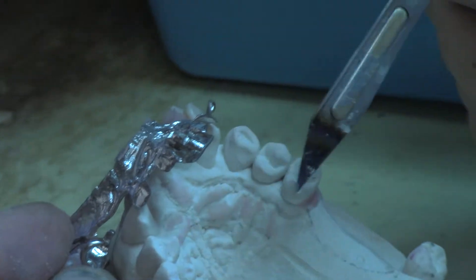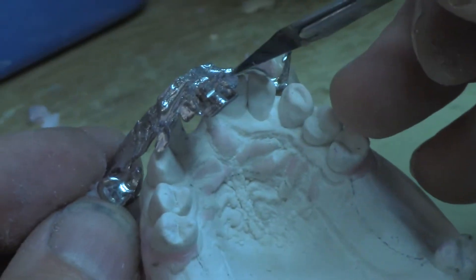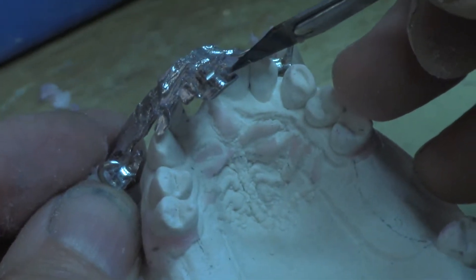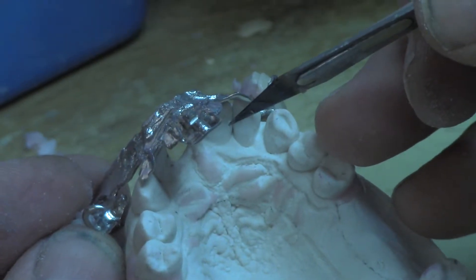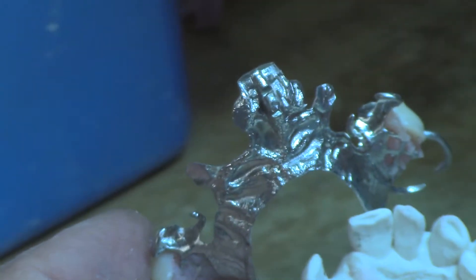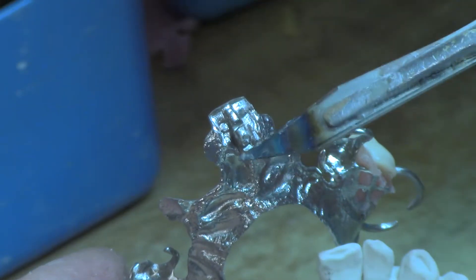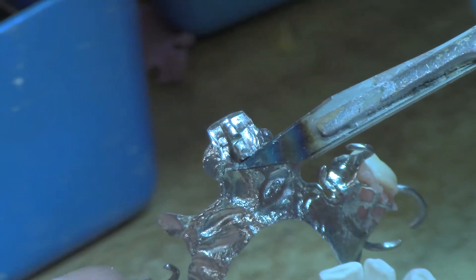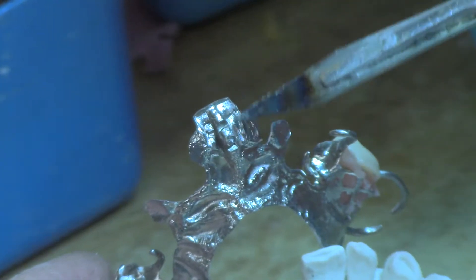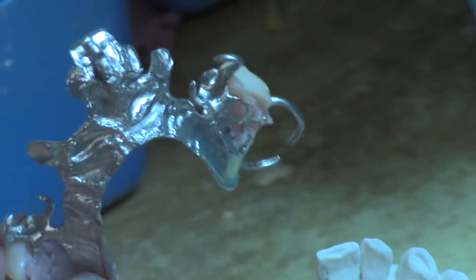When I did that I used a disc and I shaved it so it was razor thin, so I could get in there without making too big a cut. I'm going to turn it over — there's a big cut here and there's a cut under here. So now I have retention all the way around this.